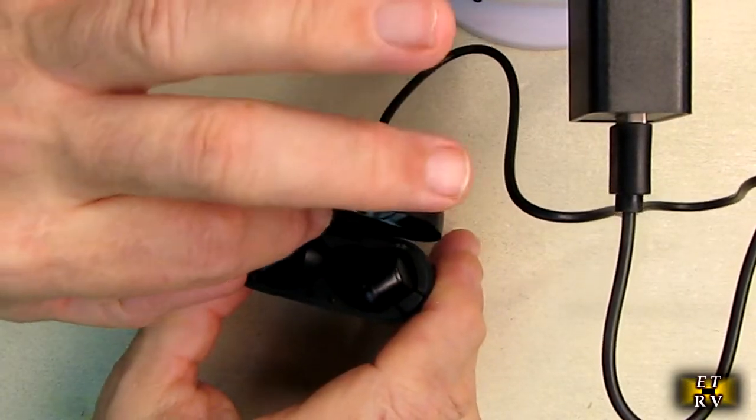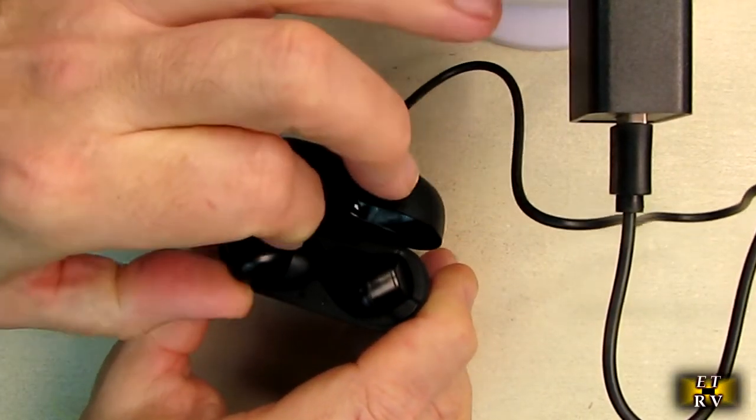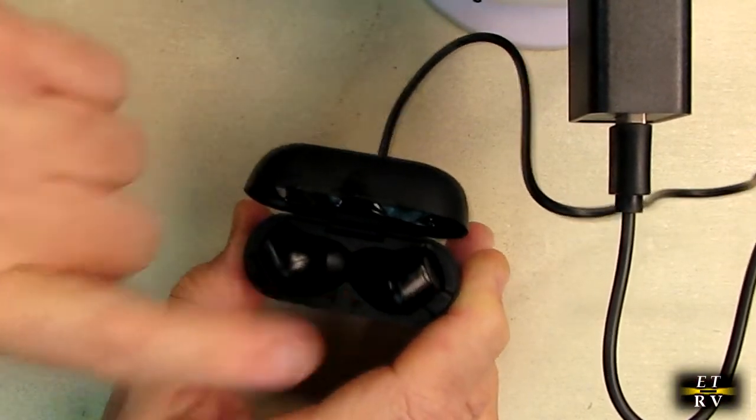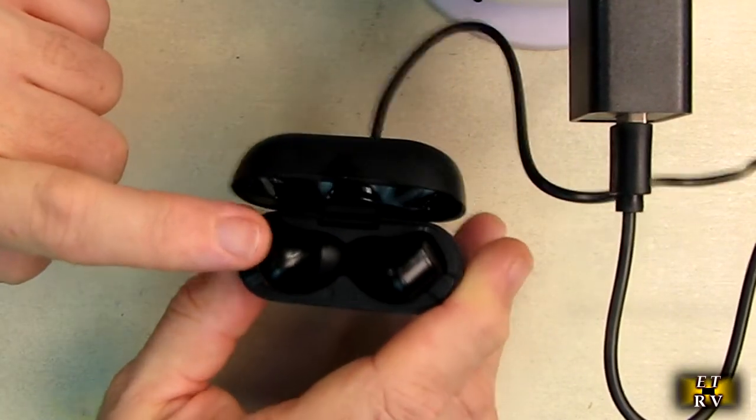Sounds really good. The amplification of sound is not on right now because you wouldn't want it on, but it sounds really good and they're very comfortable in my ear. I want to point out these only fit one way, so you can't get left and right mixed up.